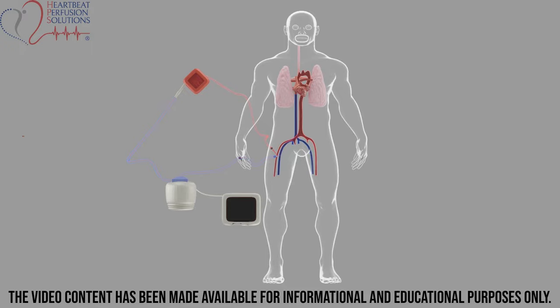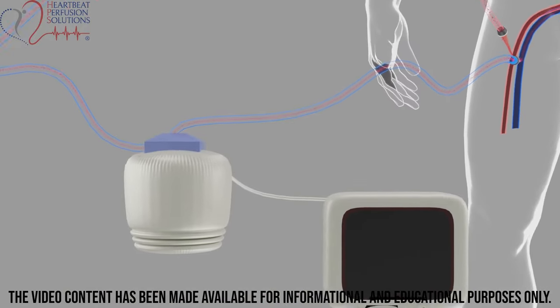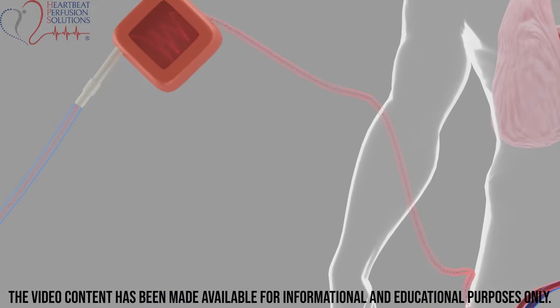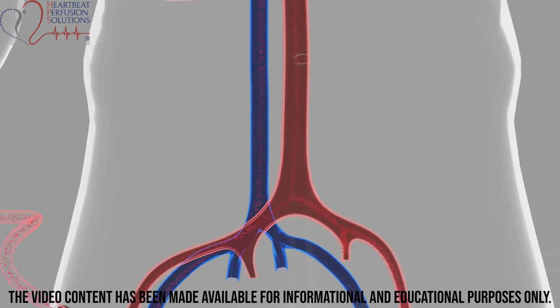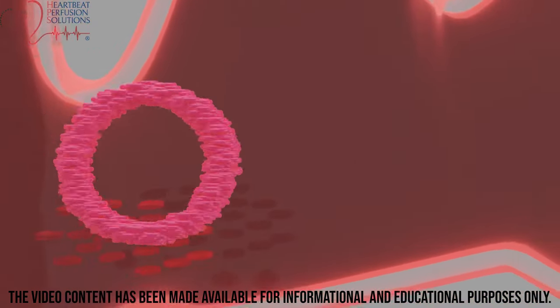The most common cannulation technique for VA ECMO is via the femoral artery and vein. ECMO drains blood from the human body through a femoral vein catheter, then pumps it to an oxygenator where blood oxygenation occurs. The arterial return is directed into the descending aorta in a retrograde fashion via the femoral arterial catheter, which forms a mixing cloud between blood returned by the ECMO circuit and blood ejected by the left ventricle.